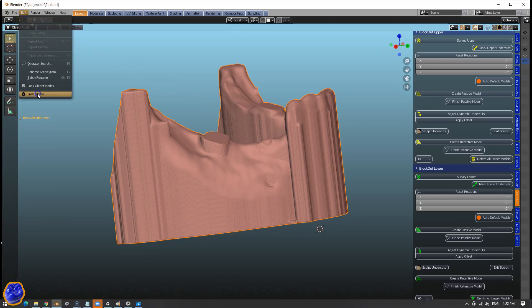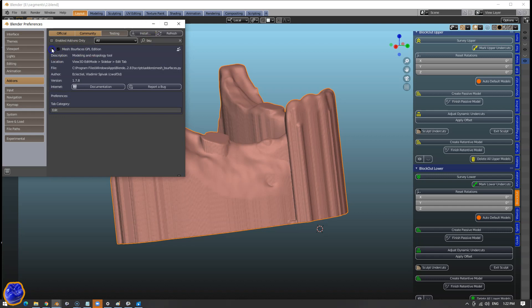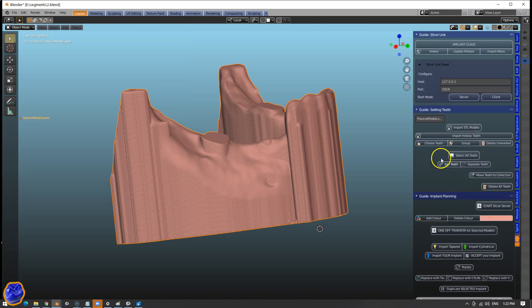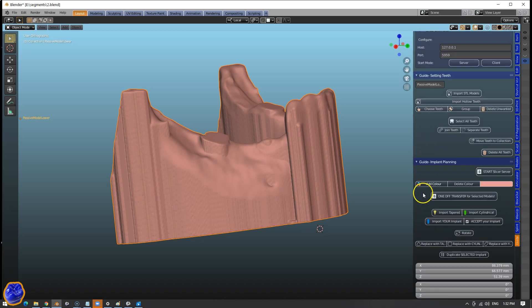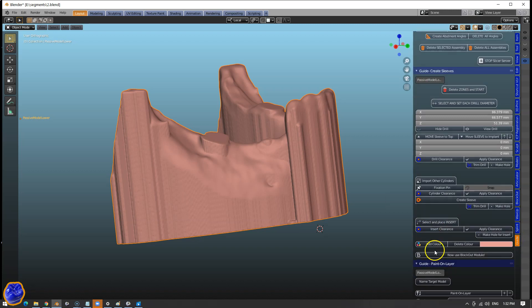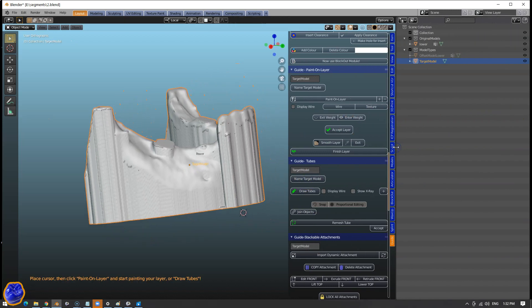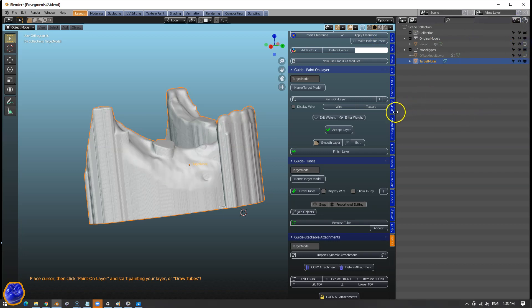So now what we're going to do is install another add-on which is called B surfaces. Seek it in your preferences file and then click the box and save your preferences. And what I'm going to do is name this the target model. You don't really have to, but in this case I'll just call it target model. And I'm going to hide away all the other objects that I don't want to see on the scene — I'll only have that specific model on the scene.